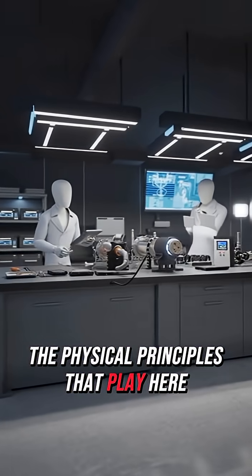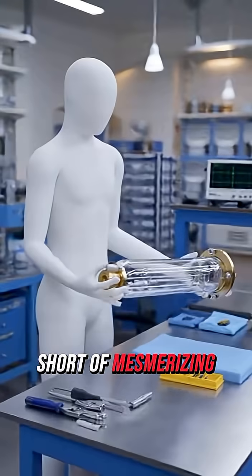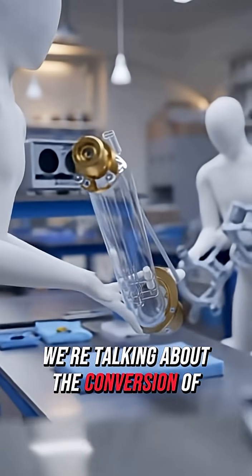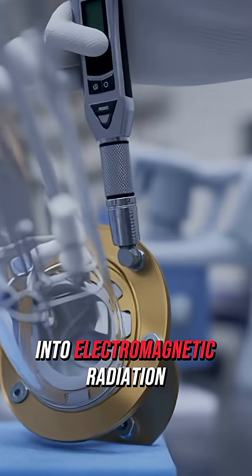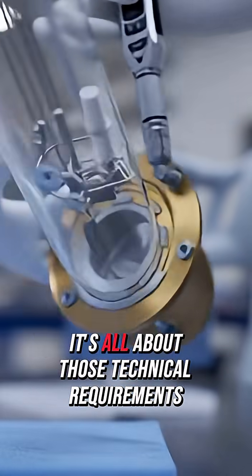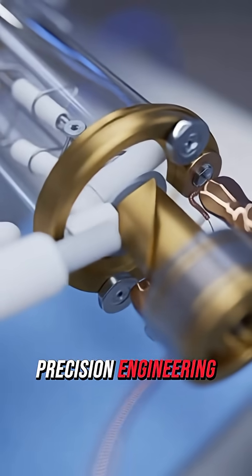The physical principles at play here are nothing short of mesmerizing. We're talking about the conversion of kinetic energy into electromagnetic radiation. It's all about those technical requirements and precision engineering.